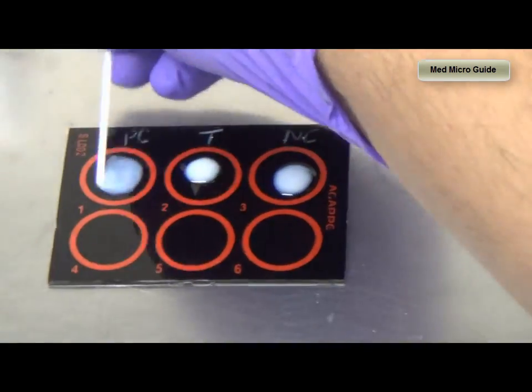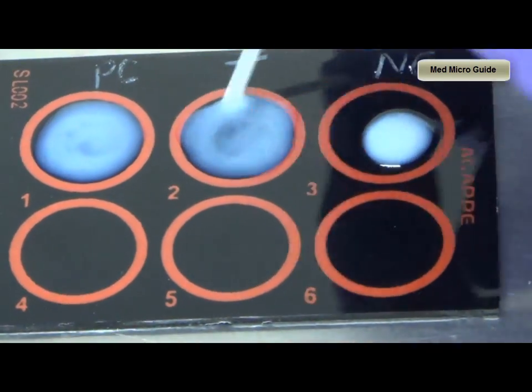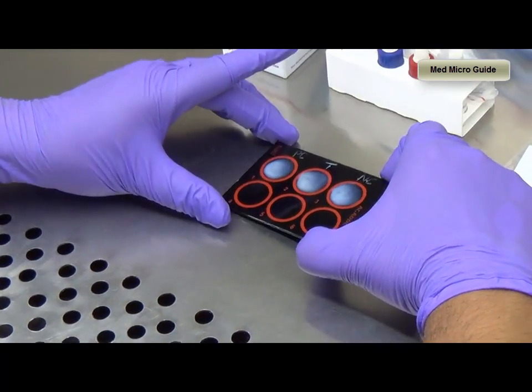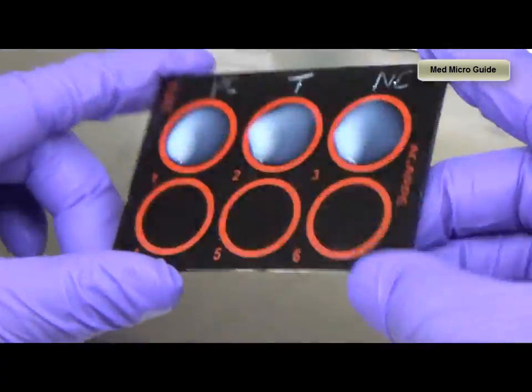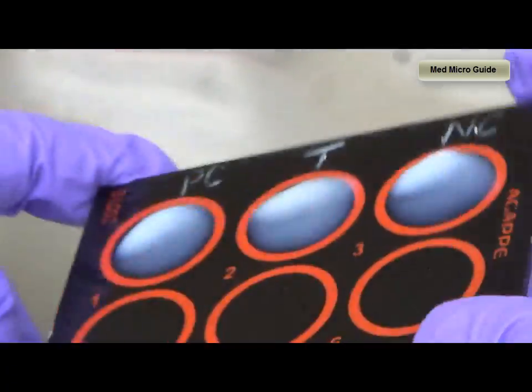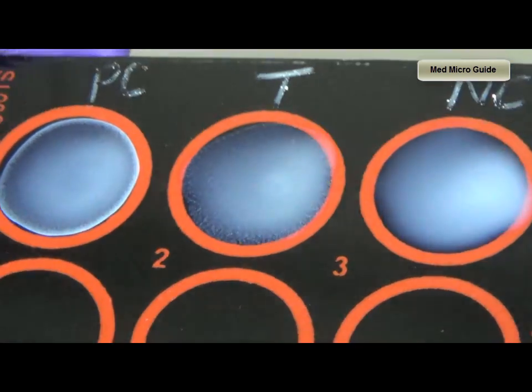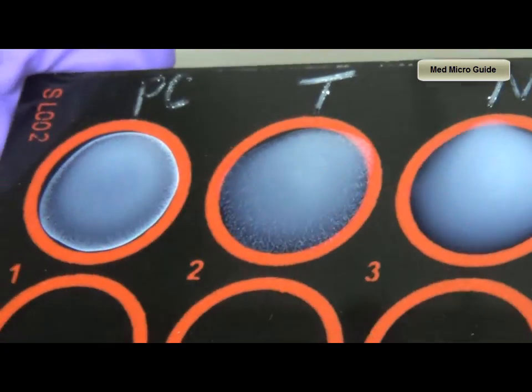Once the reagent is added, we have to mix the reagents using a separate applicator stick for each circle. After mixing, rock the slide to and fro for 2 minutes. Look for the clumping of latex particles in the test sample. If you see agglutination, it indicates the test sample contains ASO titers of more than 200 Todd units.